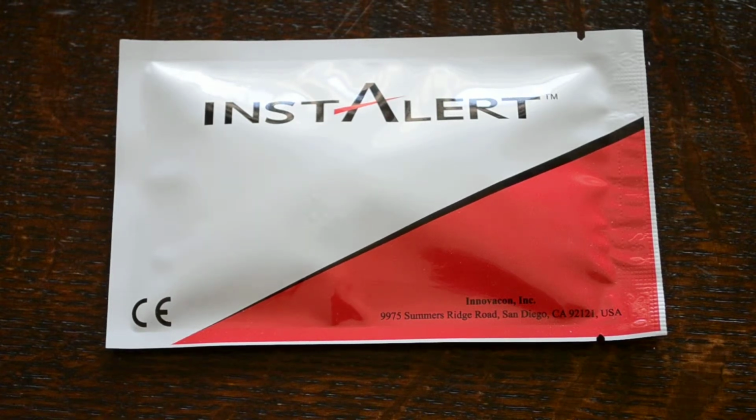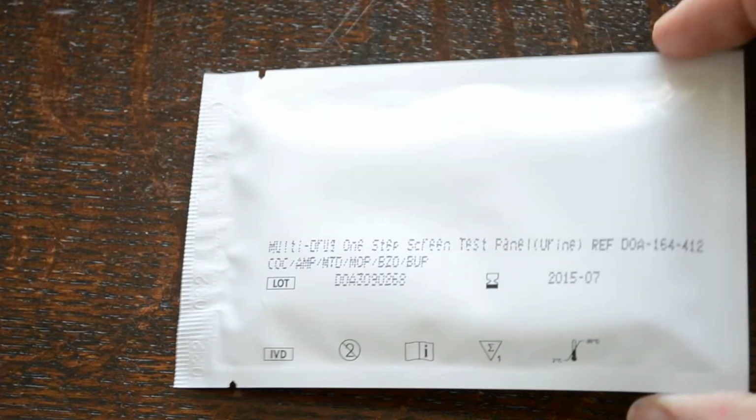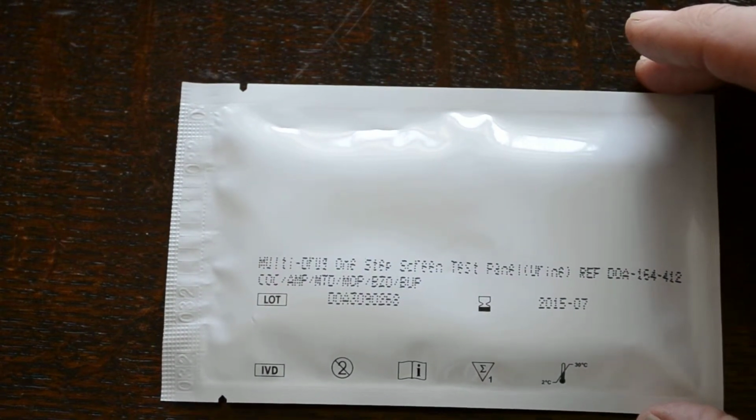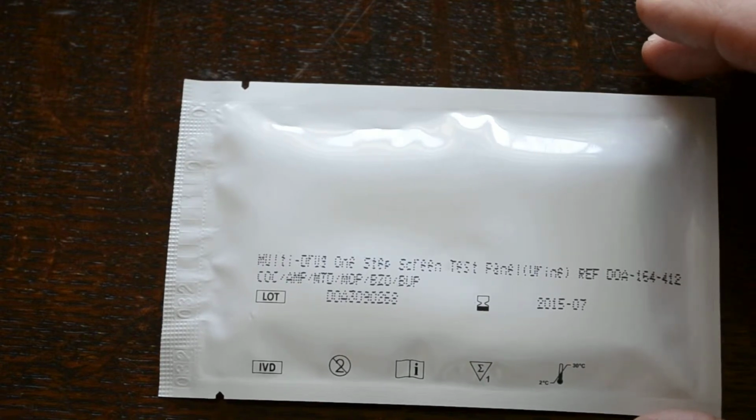Okay, welcome to this video. We're going to show for you the InstAlert 6-panel drug screening test. It includes buprenorphine and methadone and opiates and benzodiazepines, amphetamine and cocaine.